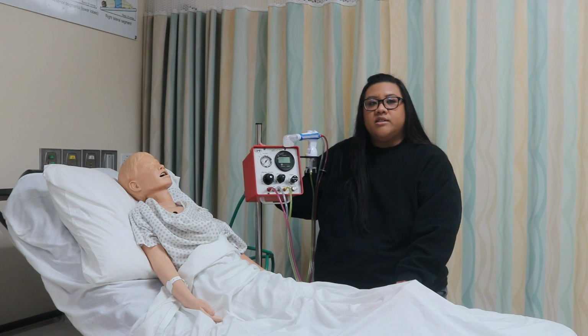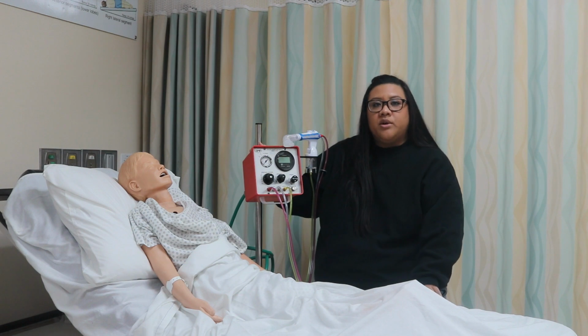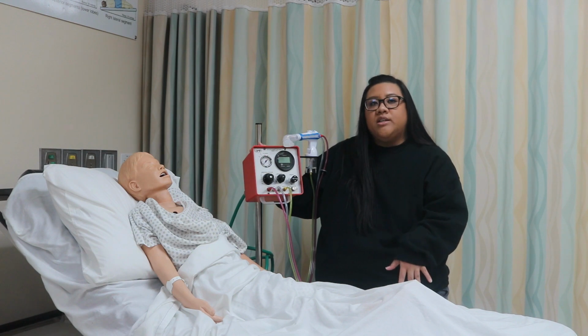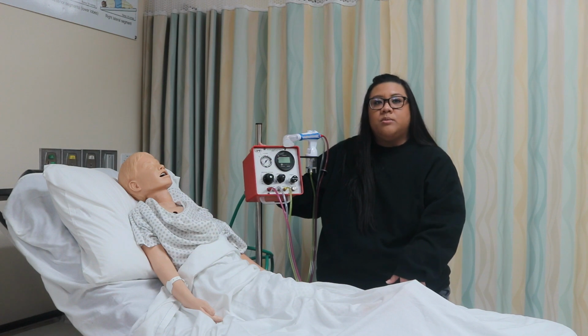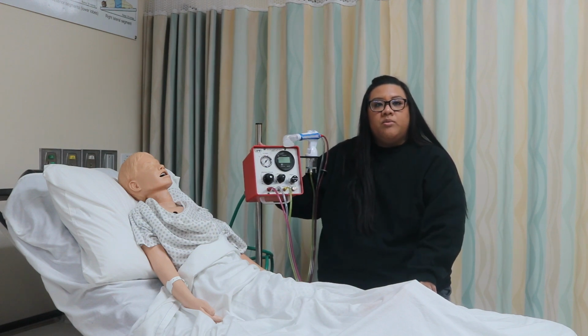And the percussion control here determines the number of flow bursts that occur during the breathing cycle. The percussion frequency is adjustable from 1 to 11 hertz. And when the frequency is increased, the pressure amplitude decreases, and as the frequency decreases, the pressure amplitude increases. And lastly here, there's a manual inspiration trigger. This device will remain in the inspiratory phase as long as this button is depressed. By releasing the button, it'll allow passive exhalation.